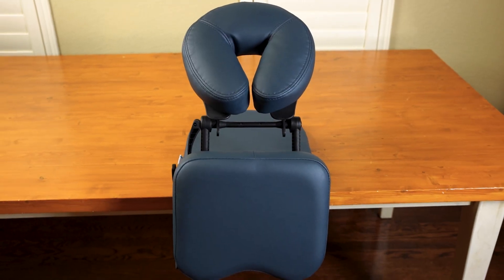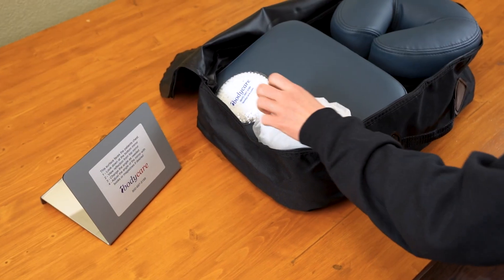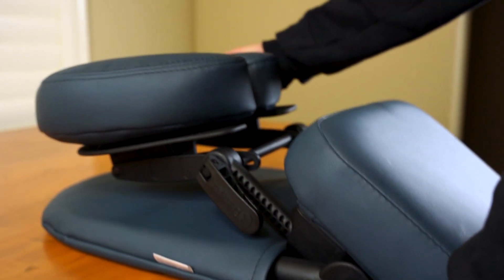These are the Vitrectomy Recovery Kits by iBody Care. These three kits include your must-haves for eye surgery recovery and a few bonus items for even more comfort and convenience. All three face-down post-op kits come with an 8-inch hands-free two-way mirror so you can recover while you eat, read, write, or watch TV, and a portable adjustable head and chest support unit for your desktop or table.